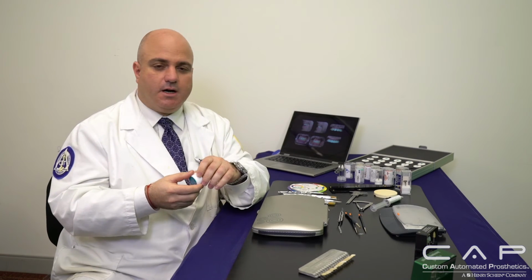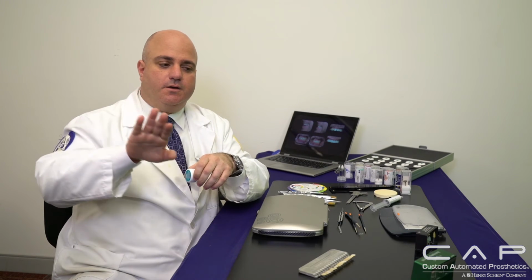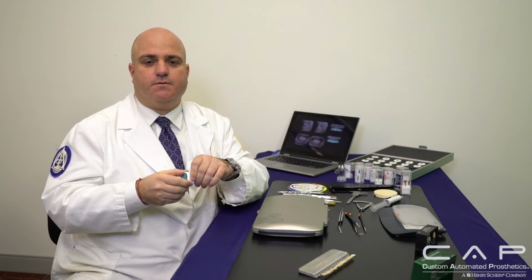So the only place I want that high shine is in the high spots, which are typically the height of contour. In an anterior, the mesial, distal, and the central lobe tend to have the higher shine, and that's because our lips are constantly moving over it as we chew and talk. So in nature, they actually shine those areas, whereas on the concavity areas, our lips don't abrade and shine it, nor does the inner part of our mouth. And so you have more texture there. So we want to emulate exactly that.